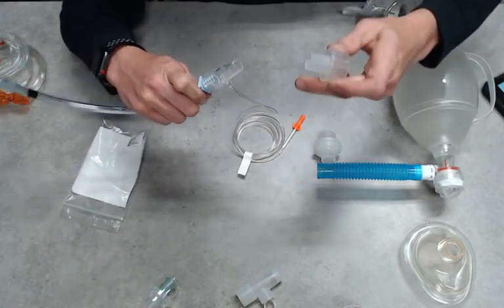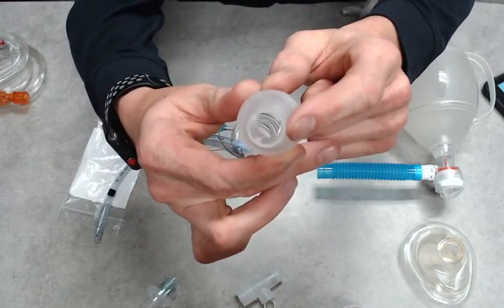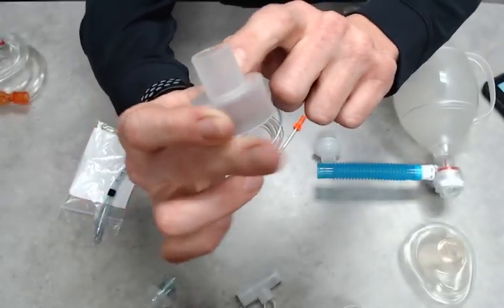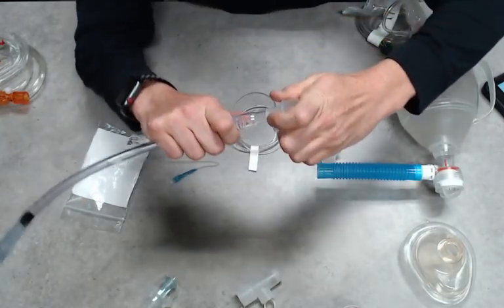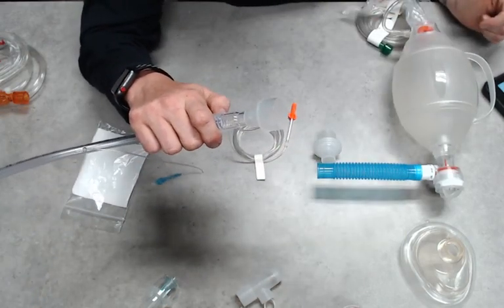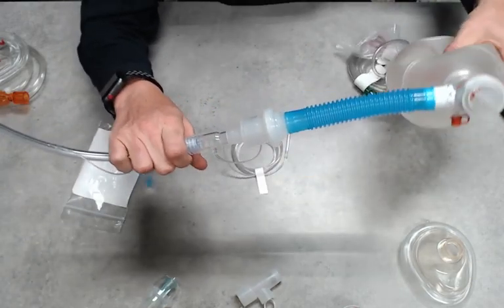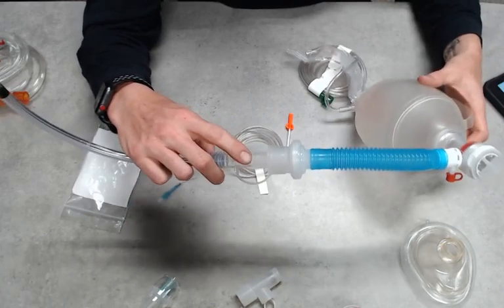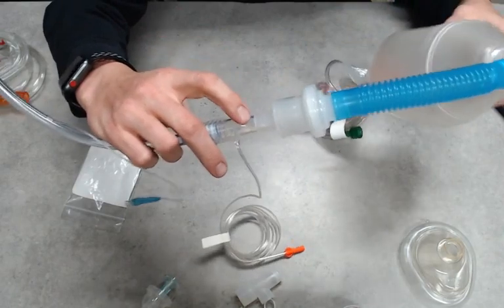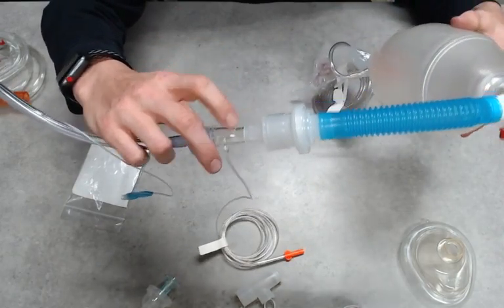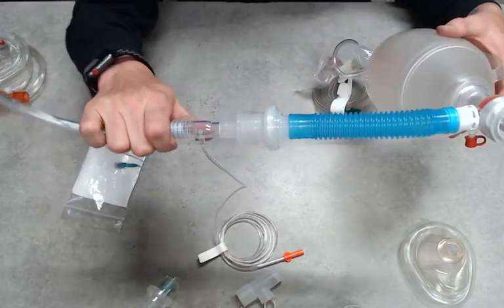Well, what I noticed if we try to use this adapter, this adapter in the neck of it has these little ridges inside of it. I don't know if you can see there, but if you had this equipment you'd be able to tell. When you try to attach this to your end-tidal, you'll notice that first you really have to push into that to make the connection. And then when we attach our filter and our BVM, we noticed that when we started ventilating, I can actually feel a little bit of air leaking out right here. So we're causing an air leak, which isn't good for the circuit, and we're kind of defeating the purpose of our filter because now content can actually get past this leak and into the environment. Not good for us.